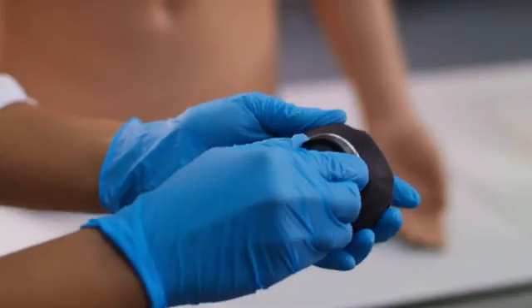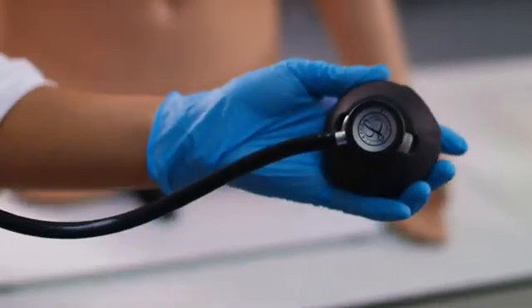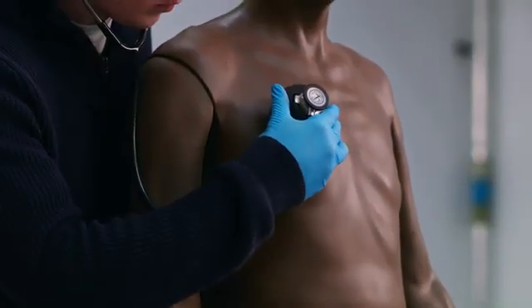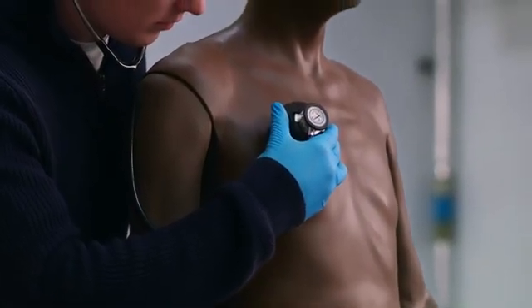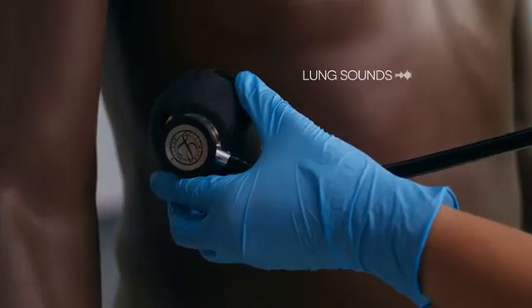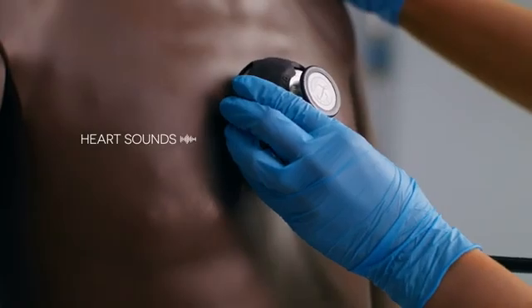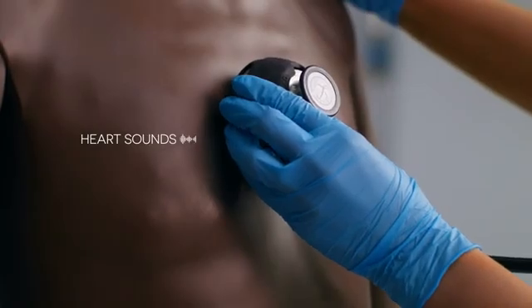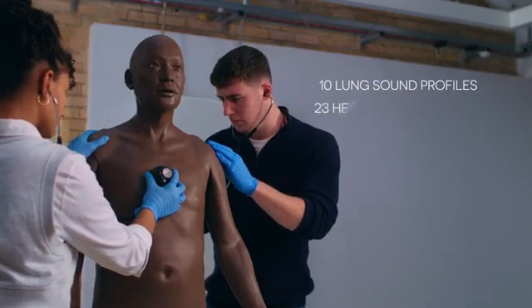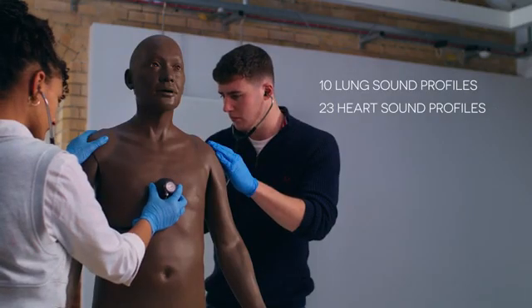The key skill of auscultation is achieved by using a limb pad on a standard stethoscope, giving the learner sound recognition training for both lung and heart sounds. With over 30 different sound profiles, the limb pads can be used by two students or via speaker.